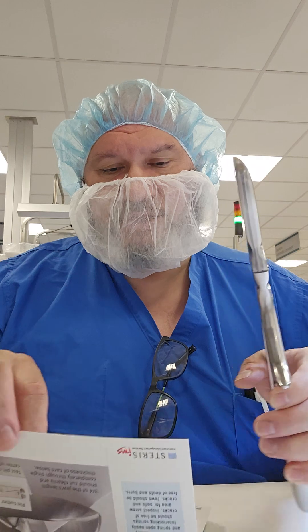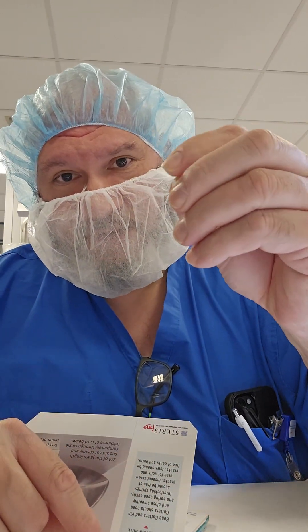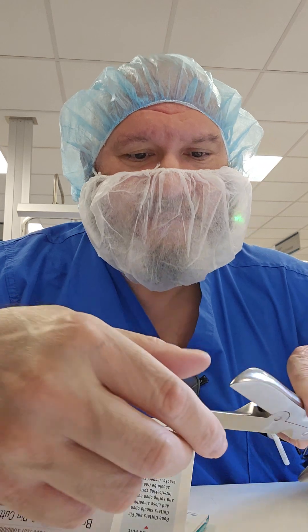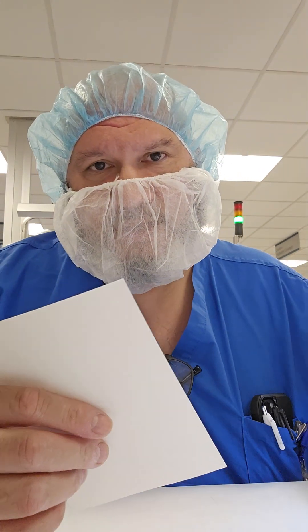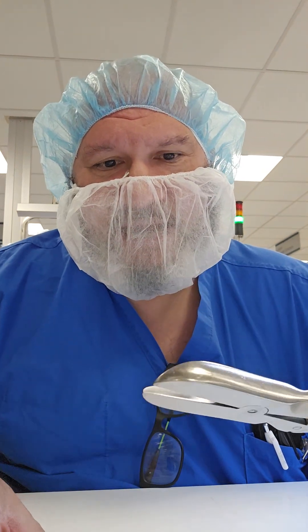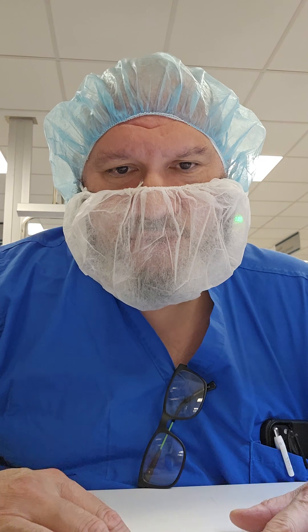Sometimes the cut material flies — just gather it and wipe the blades to make sure no filaments go into the tray. If you don't have access to a testing booklet, the standards and training state you can use a standard index card or PCD cards in the exact same way. That's how you test and inspect these two common ortho instruments — stay true to yourselves, keep it 100, and continue educating yourself.